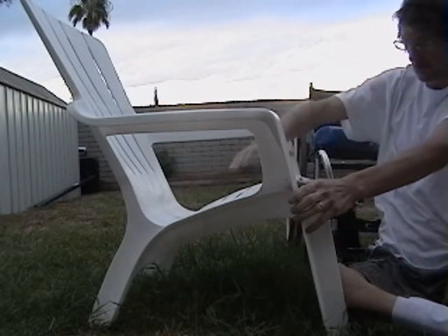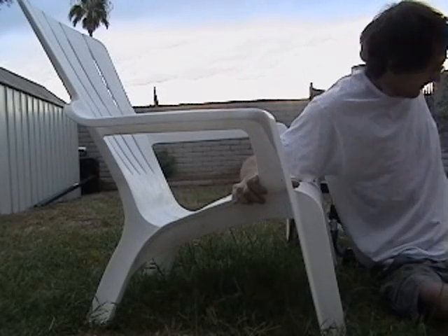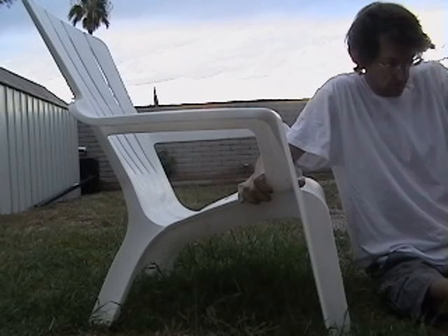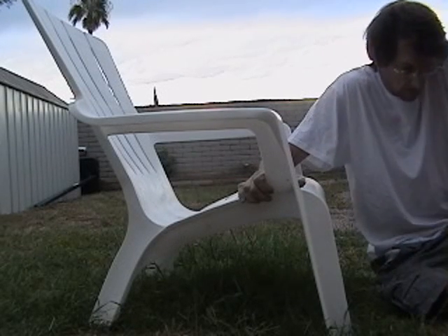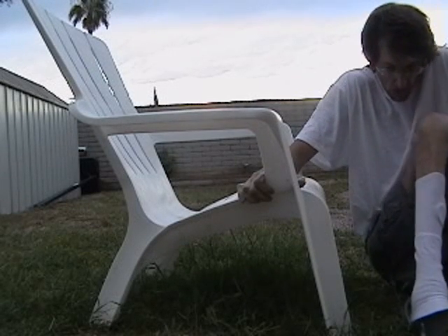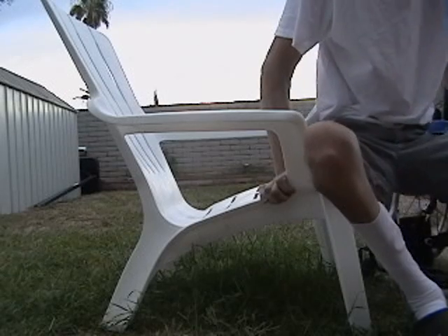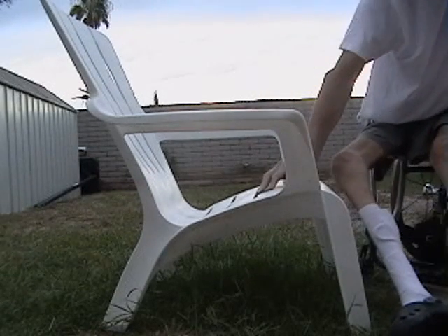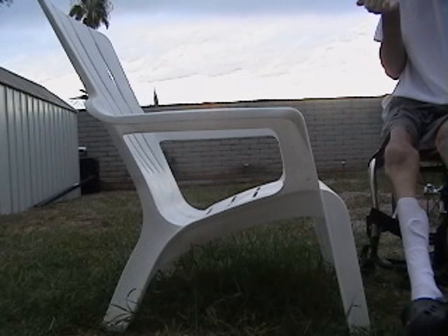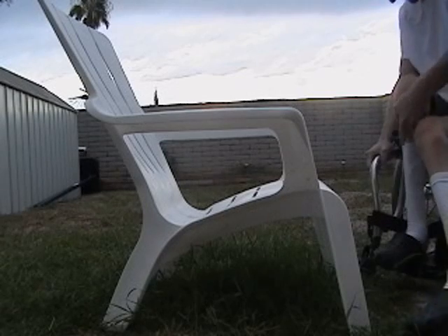Then use the summer lounge chair and my wheelchair frame to push up on — my right hand on the summer lounge chair, my left hand on the wheelchair frame. And it's always good to bring your legs up close to you; it helps out a little bit. I don't normally transfer this way into the wheelchair, so it was a little different for me. But everything went alright. As long as you go slow when you transfer, then it's okay — and you save it.